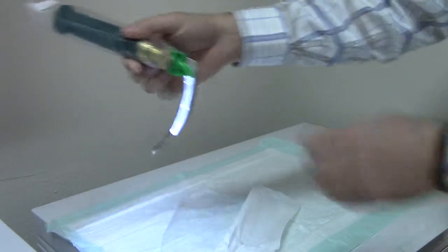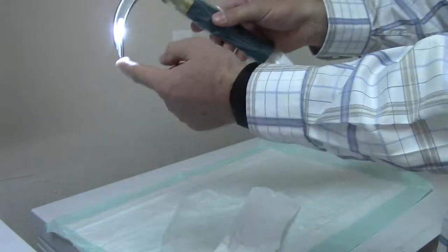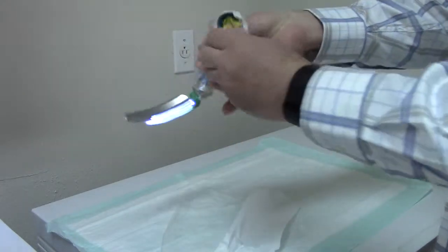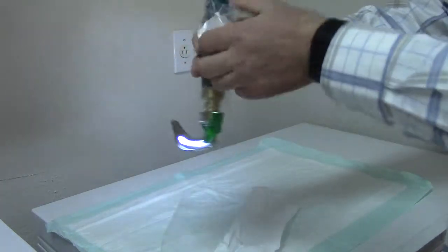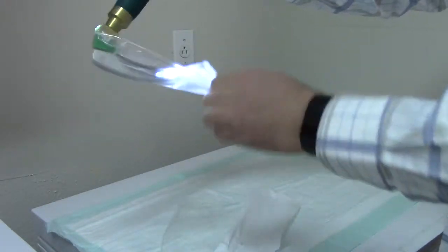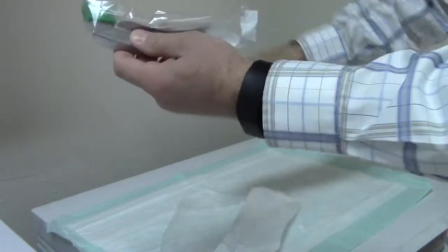Do your intubation, and instead of the danger of cross-contamination with a dirty blade touching the handle, you can simply peel back this barrier over the blade without having to touch it. Pop it off.